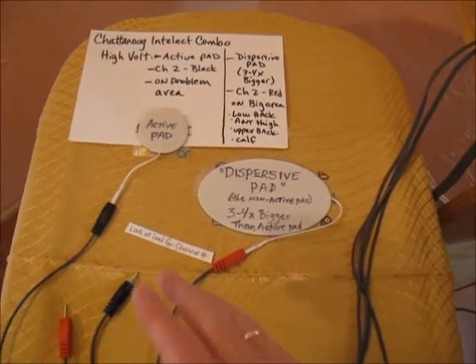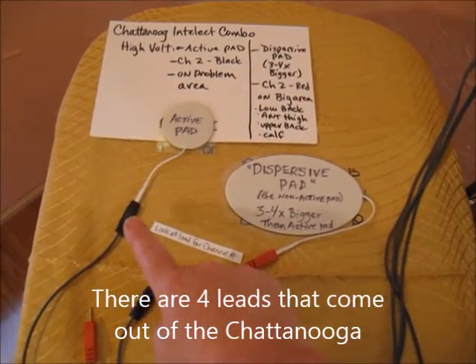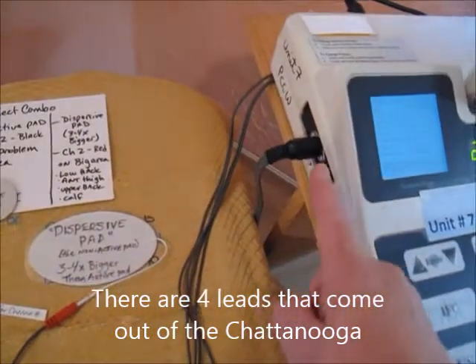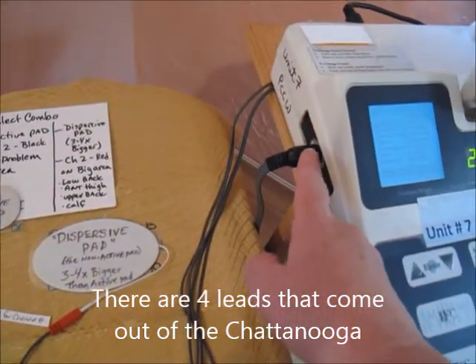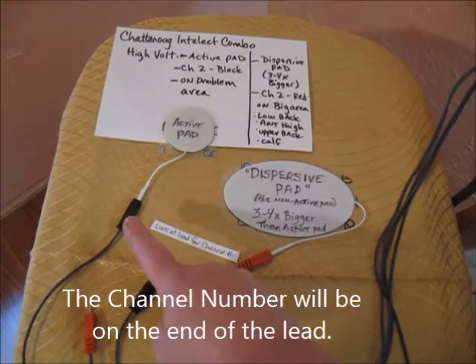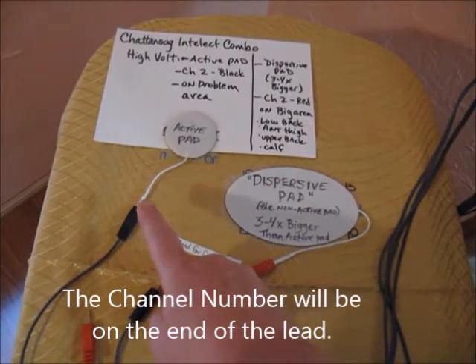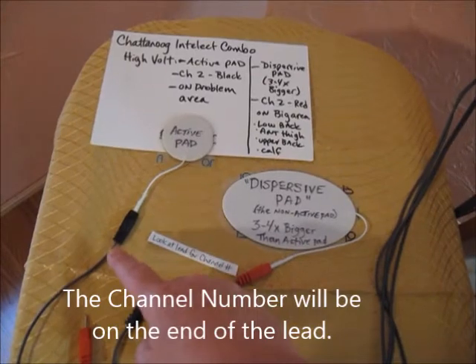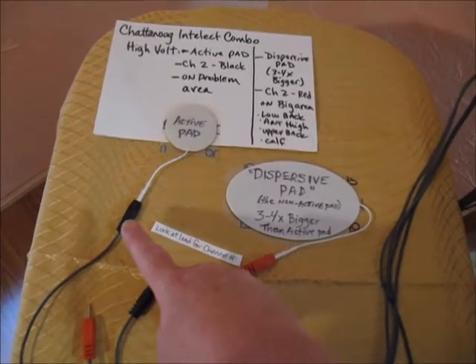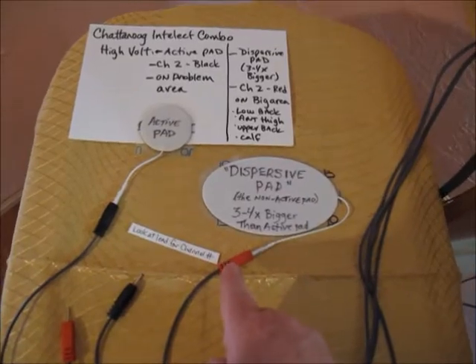I'm not actually setting it up on a human, but I wanted to show you there are 4 leads that come out of the Chattanooga. They're labeled with a small number either on the black or red part, or on the little white part right by the lead. This one says channel 2 and it is black; this one says channel 2 and it is red.